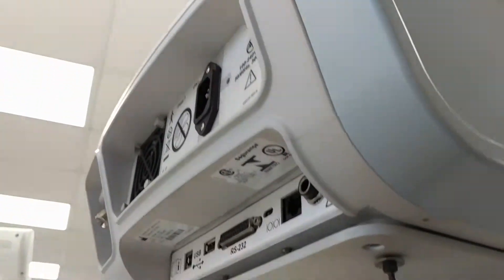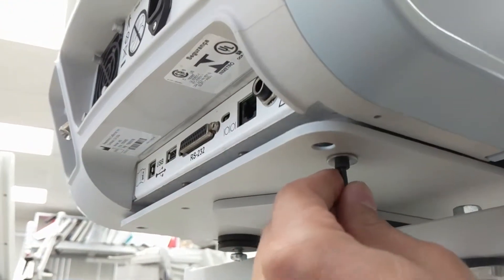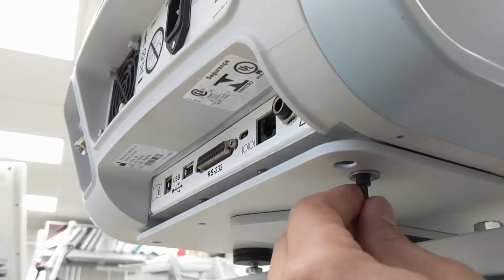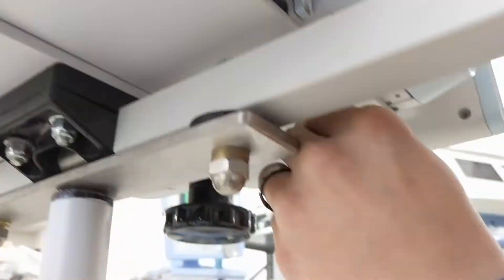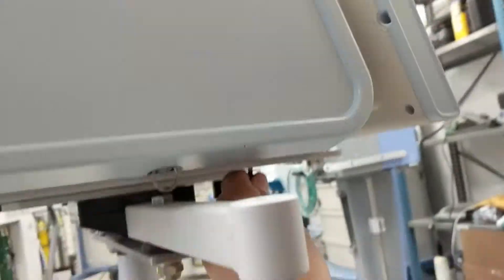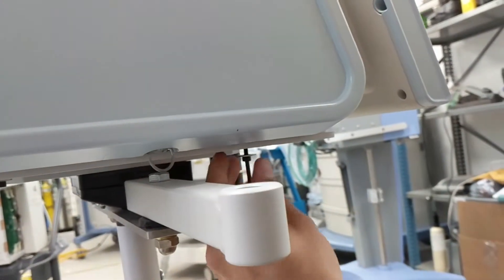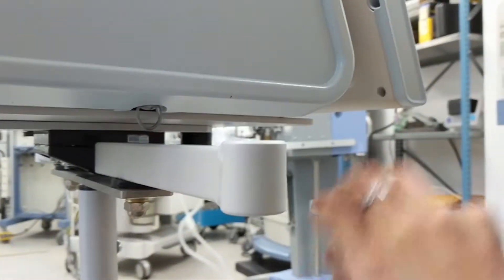Now, once you put them in, they should go right in, and they should screw in. You should start to see the unit kind of become flush with the bottom plate. Might take you a couple tries to get it completely even, but they will fit properly.